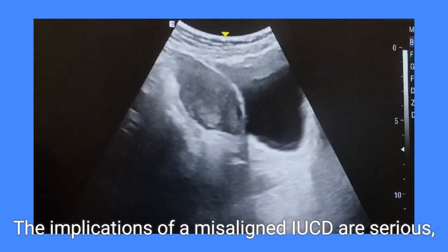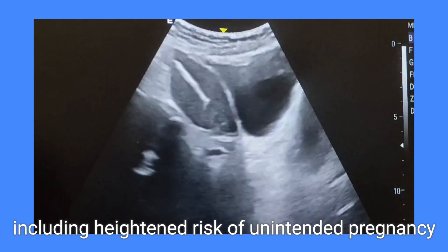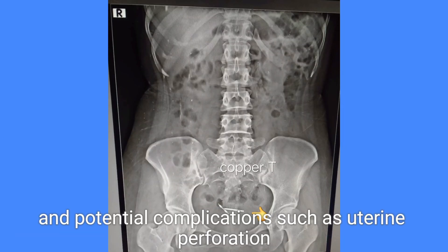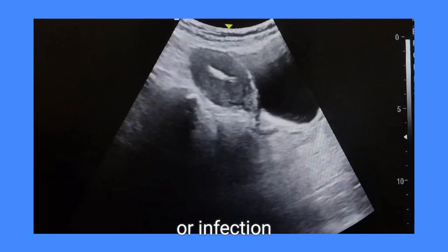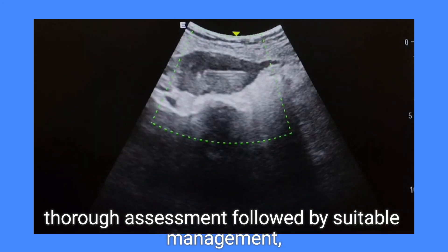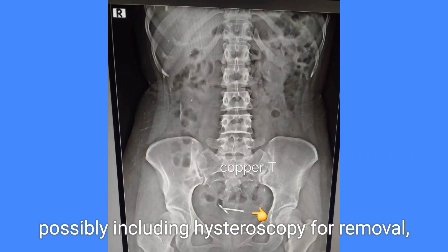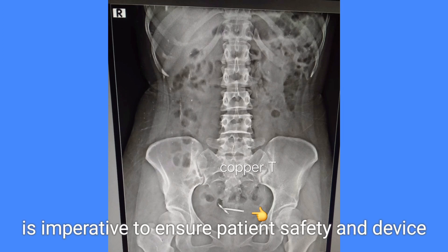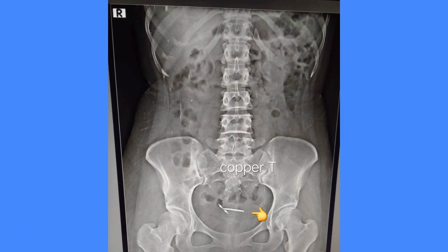The implications of a misaligned IUCD are serious, including heightened risk of unintended pregnancy and potential complications such as uterine perforation or infection. Consequently, thorough assessment followed by suitable management, possibly including hysteroscopy for removal, is imperative to ensure patient safety and device effectiveness.